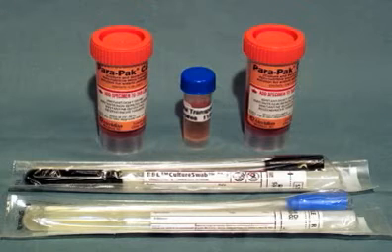In addition, there may be an indication to inoculate other transport medias if the differential diagnosis strongly indicates specific agents which are difficult to isolate or identify. Your diagnostic laboratory may recommend the use of particular diagnostic transport medias as an adjunct to sample collection.